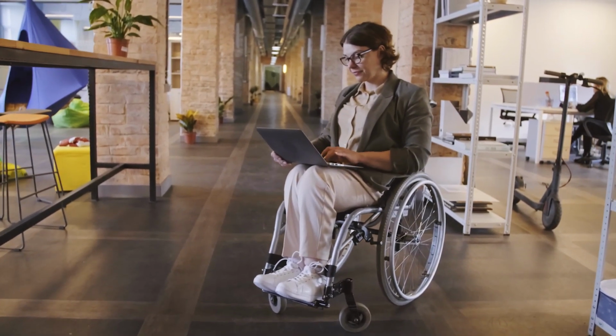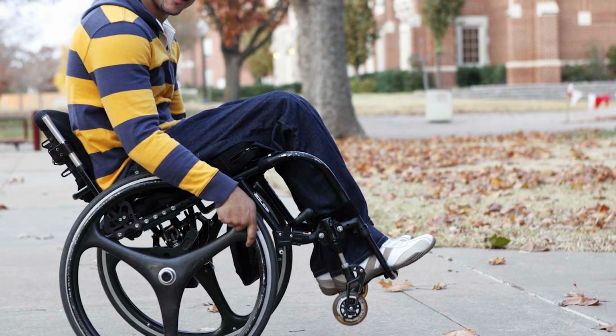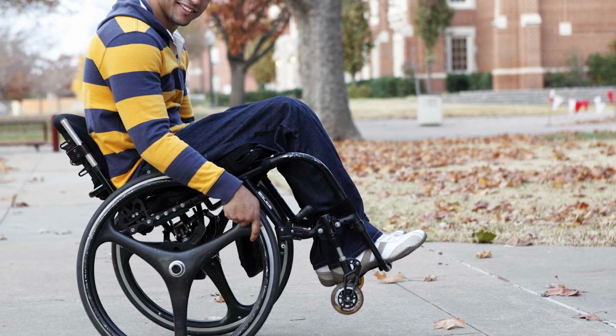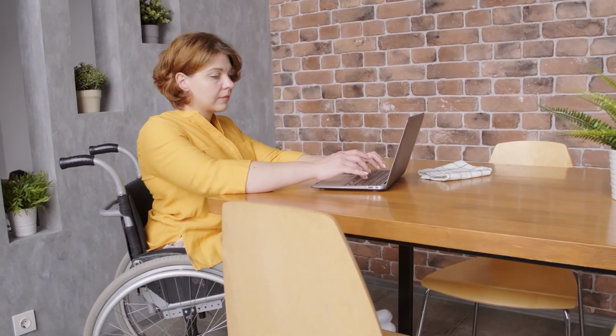Both wheelchairs and transport chairs are effective ways to increase mobility and convenience for disabled people and their caregivers. Knowing the differences between the two and considering the needs of both the user and caregiver should aid in the decision to purchase one or the other, or both.